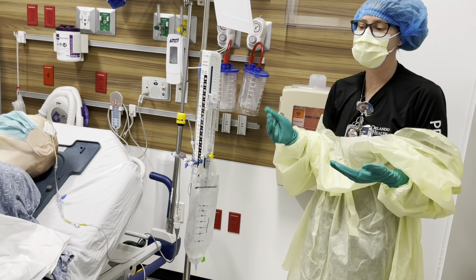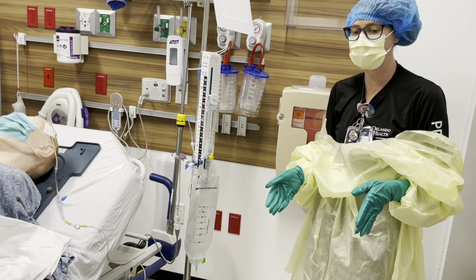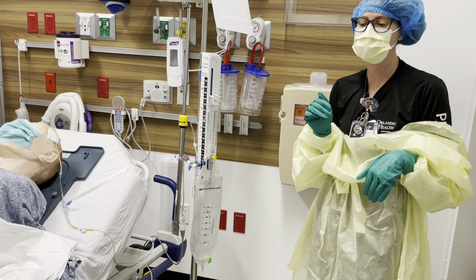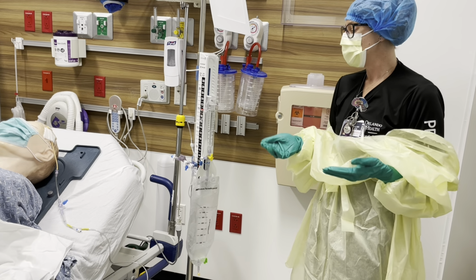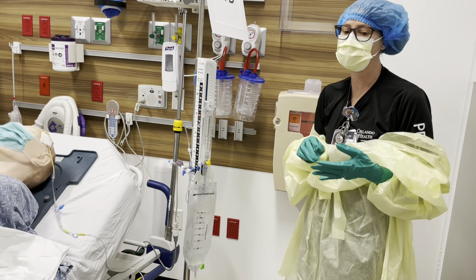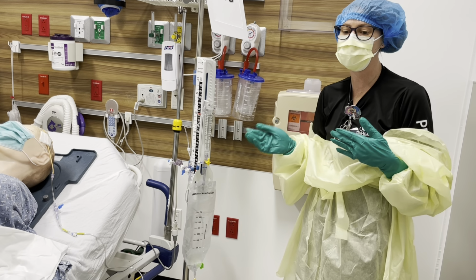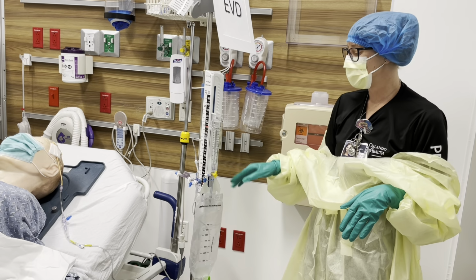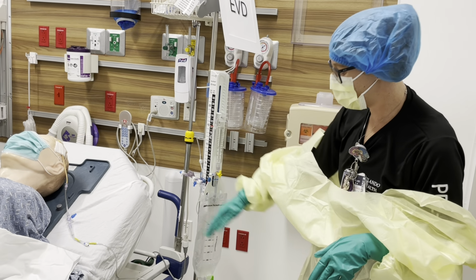Again, it can be because your patient sat up above the drain. Maybe they weren't following instructions, they sat up and they dumped a bunch of fluid. Or maybe they're ventilated and respiratory therapy came over to suction your patient and they started coughing like crazy. So anytime you're doing any movements, any type of suctioning, or any type of active care that might change the level of the bed or increase intracranial pressure, make sure that your patient is clamped, okay?